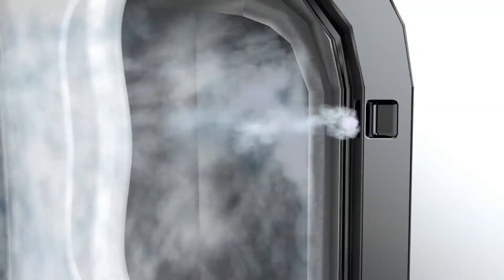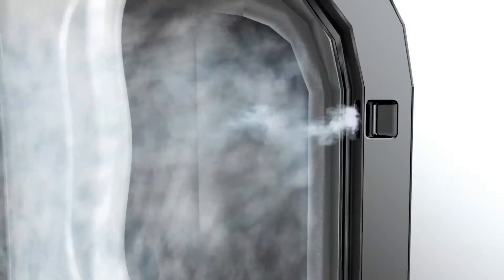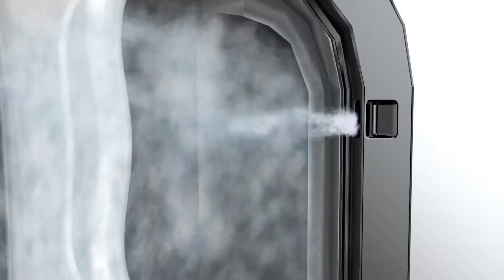The droplets of mist are so small they can get into the crevices and imperfections on the probe surface. And unlike normal aerosols, the mist can rebound from the surface so it remains dry.